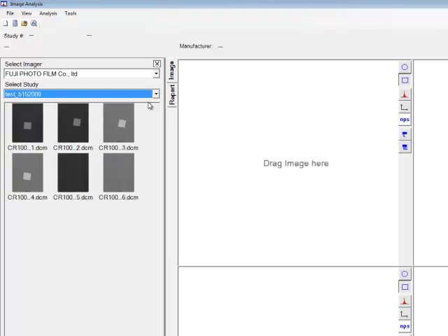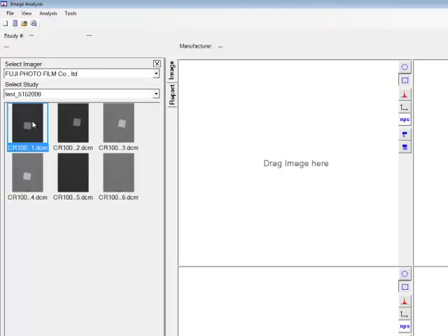Because we are going to be interested in obtaining values for the MTF, DQE, and NPS, we will select the thumbnail images where the edge tool is shown in two of them plus a noise field blank image. Note that the images can be dragged and dropped into the test frame.